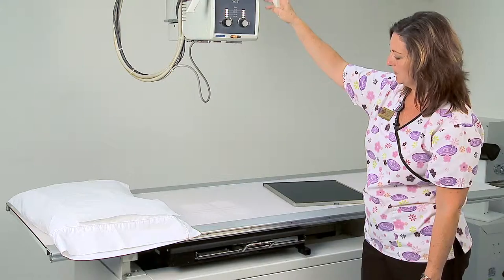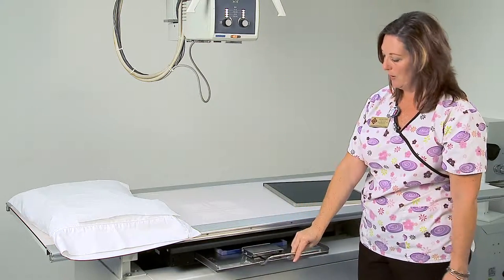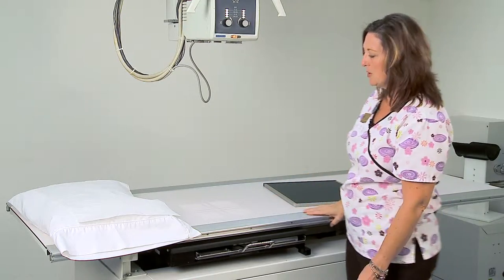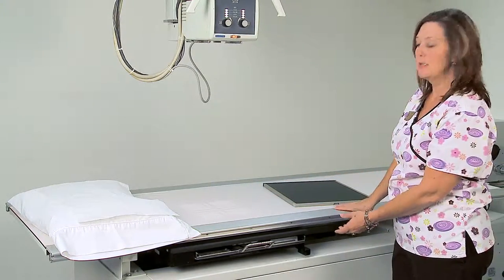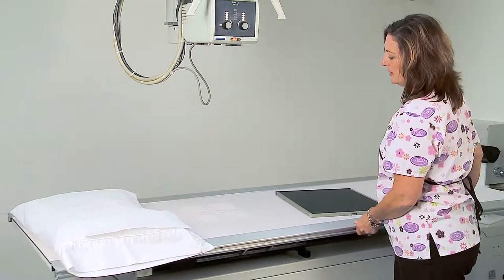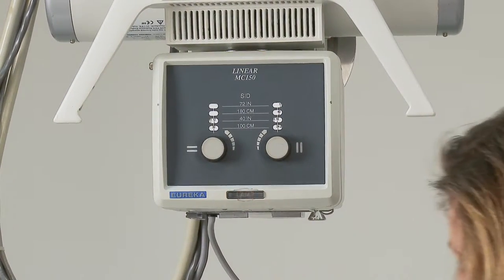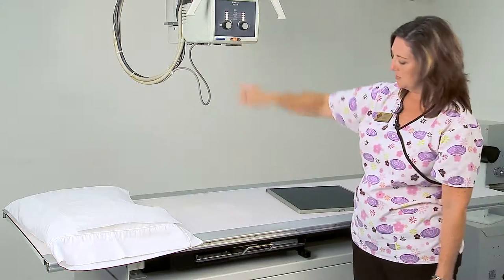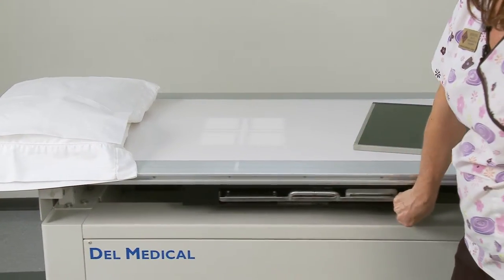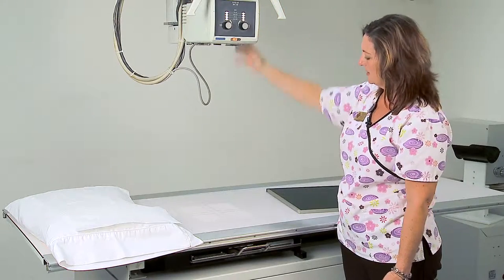Once we have our tube detented to the center of the table and tube-film aligned, we are ready to position our patient so their body part is in the center of the light field. It is much easier to move the table — it is a free-floating table able to move all around to position the body part exactly where that light field is. We have discussed the bucky tray, how it can move up and down the table, and detenting the tube to the center of the table.